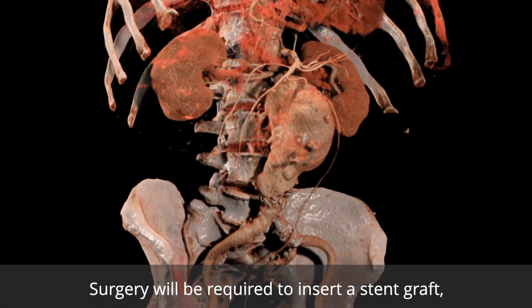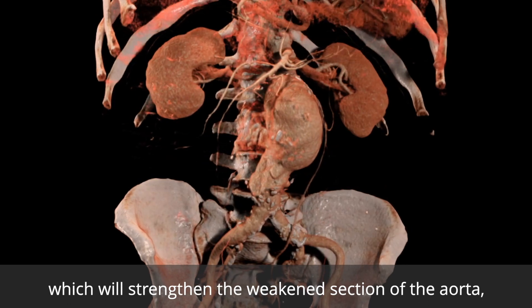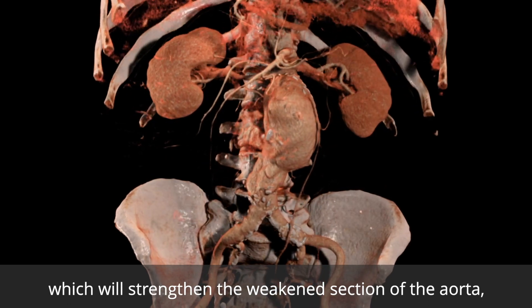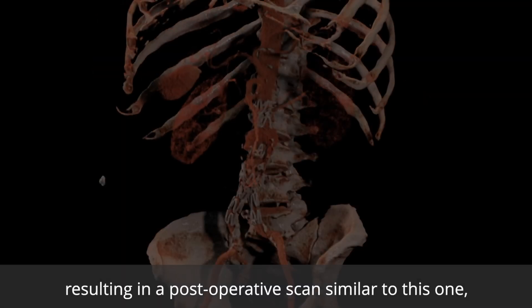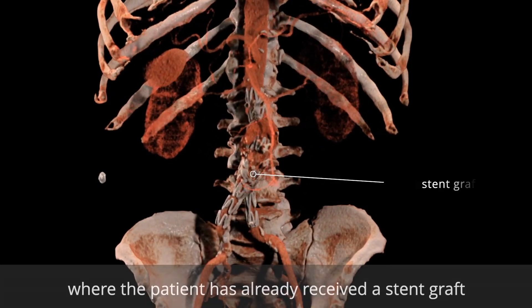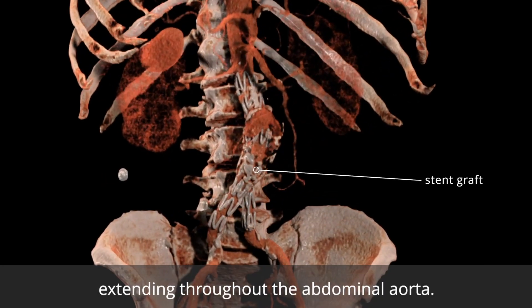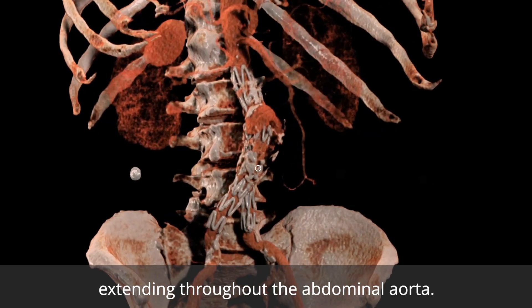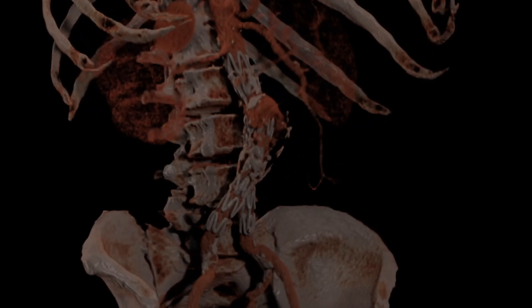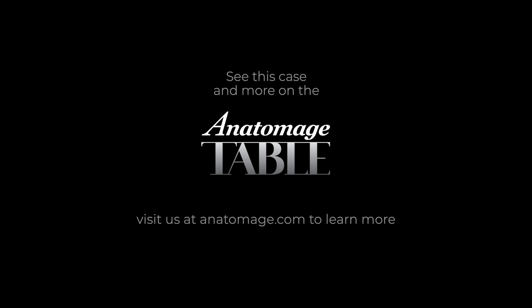Surgery will be required to insert a stent graft, which will strengthen the weakened section of the aorta, preventing it from rupturing, resulting in a postoperative scan similar to this one, where the patient has already received a stent graft extending throughout the abdominal aorta.